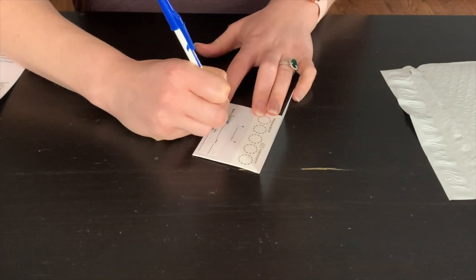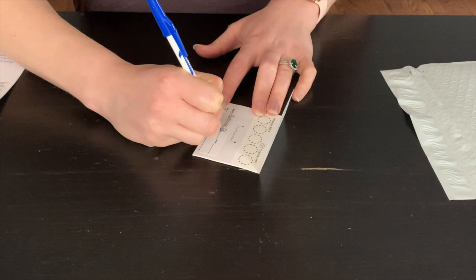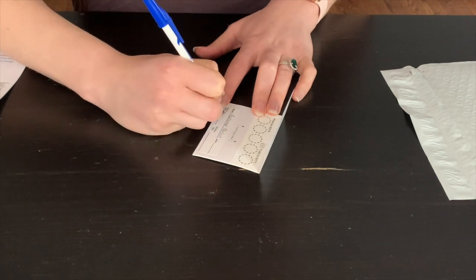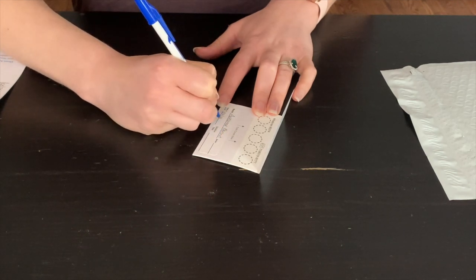Verify the name and date of birth on the specimen collection card. Write the date and time you are collecting your sample on the specimen collection card.